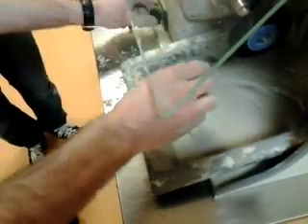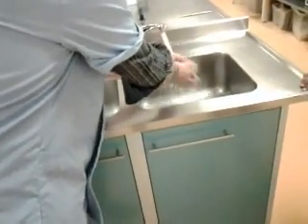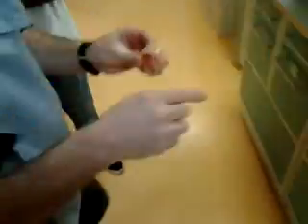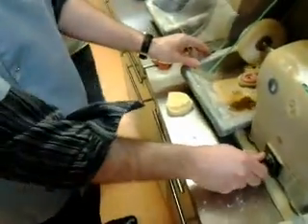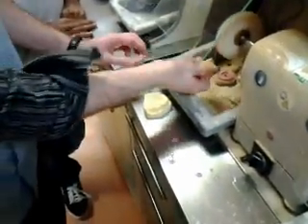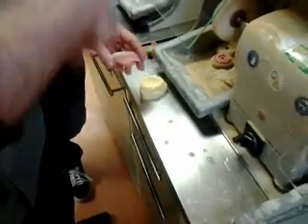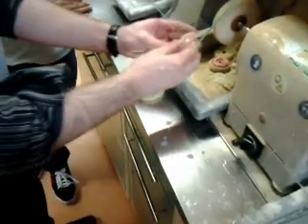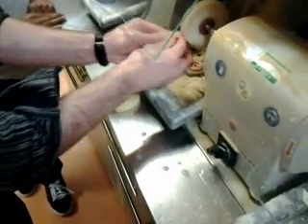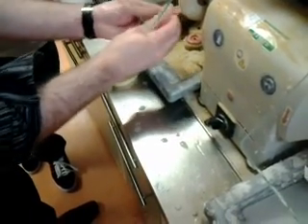For the final shine and final polish, use the mop and have it on a high speed. Use some polishing compound. Be careful your denture doesn't get caught in the mop — it can be thrown backwards and there's a risk of it being smashed. Again, use random movements and keep the denture moving; don't hold it in one place because friction will cause the denture to burn.